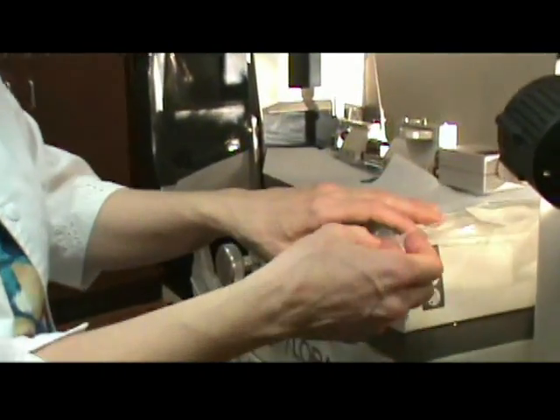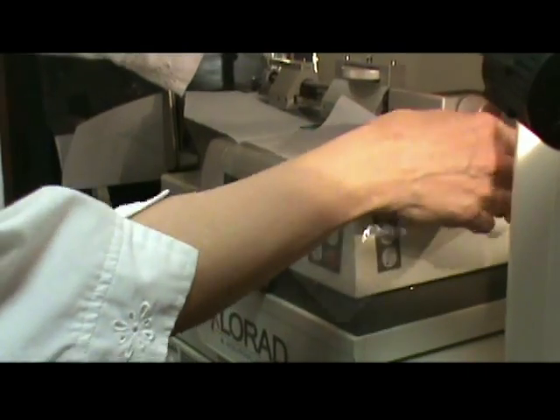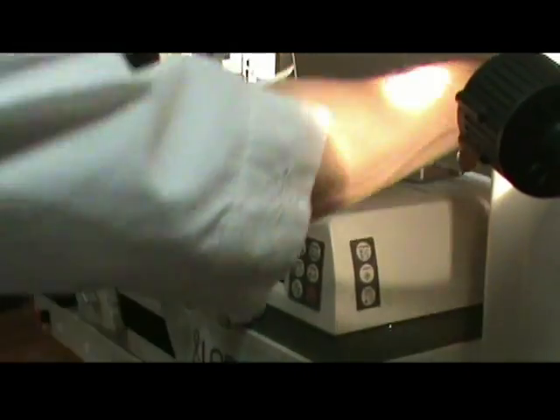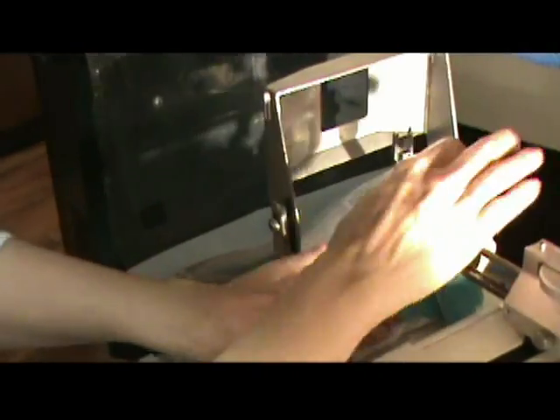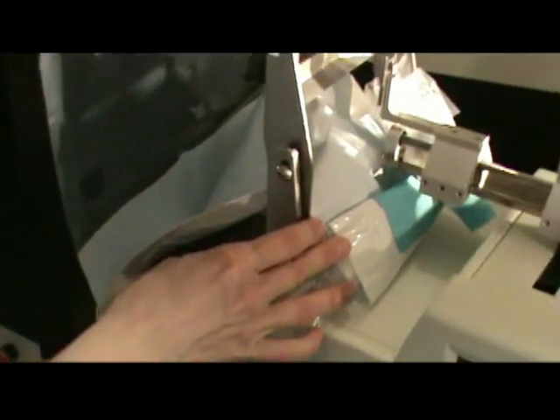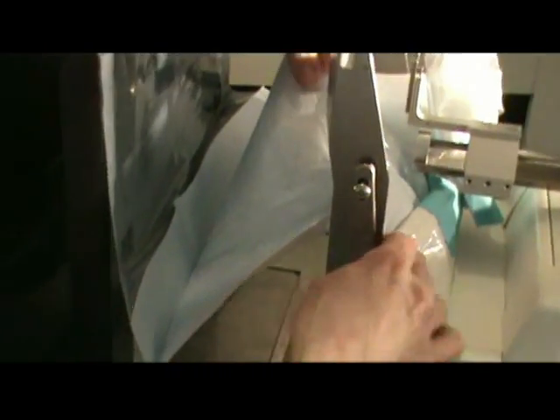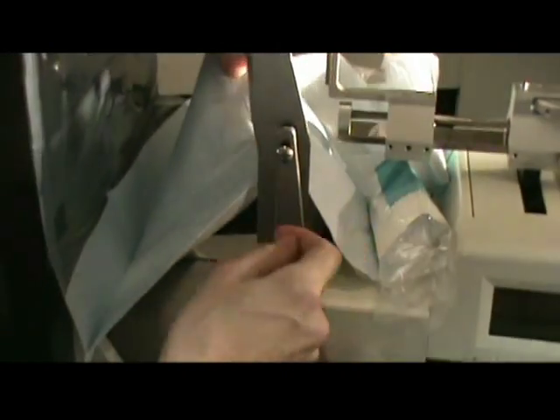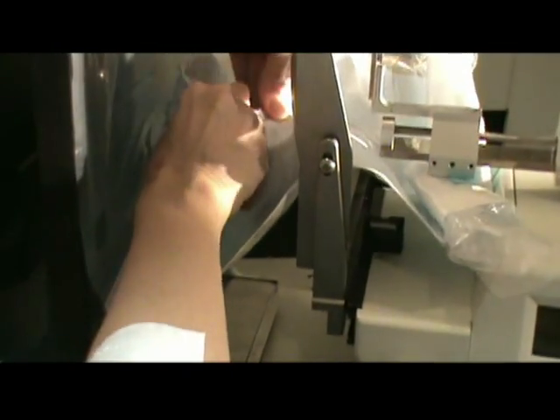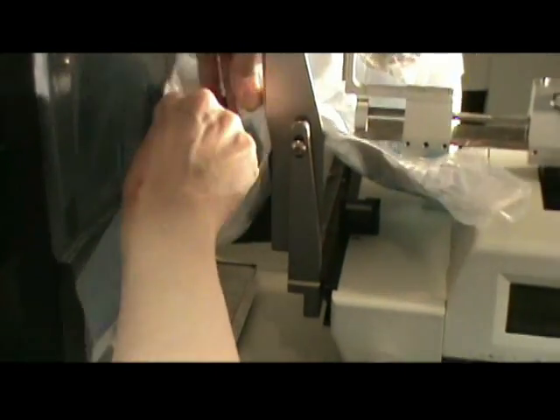The next part is the actual stage drape — you're going to remove this the same way as when we put it on. Fold this part up first, then this part, trying to contain all the fluids that this might have captured during the biopsy. Once you're to this point, the best thing to do is perforate right here and tear these pieces apart so you don't have to pull it through the biopsy system with any fluids. Just perforate and it tears apart.